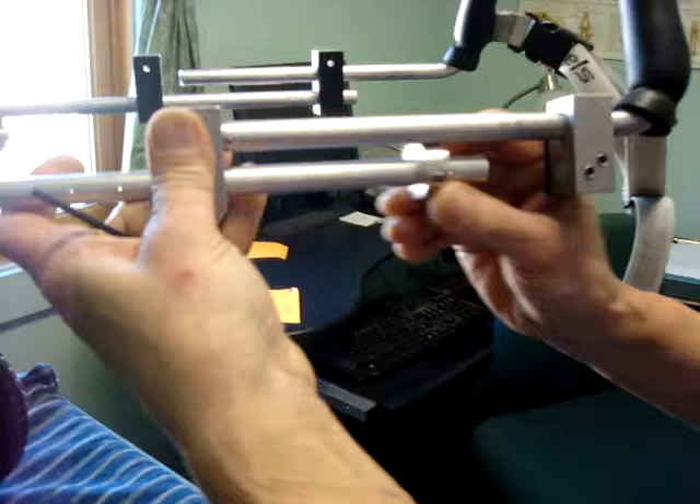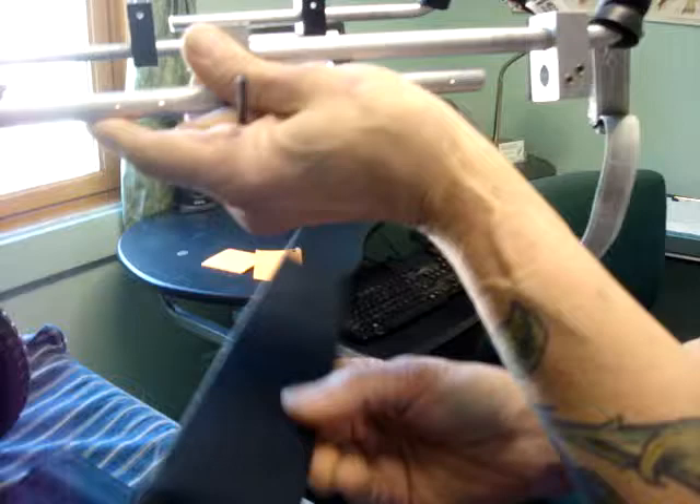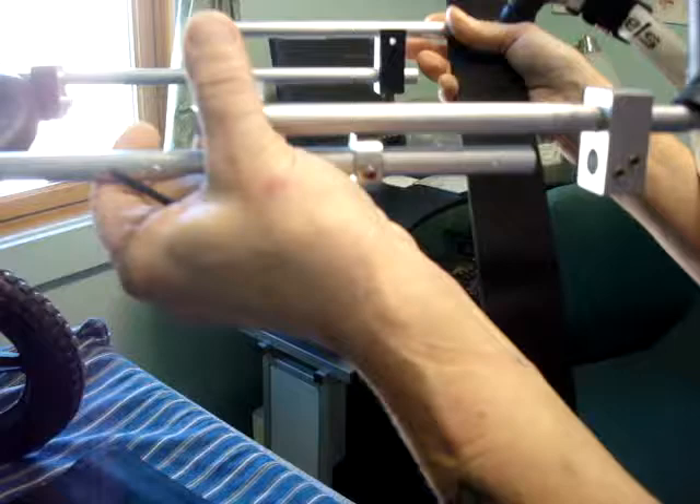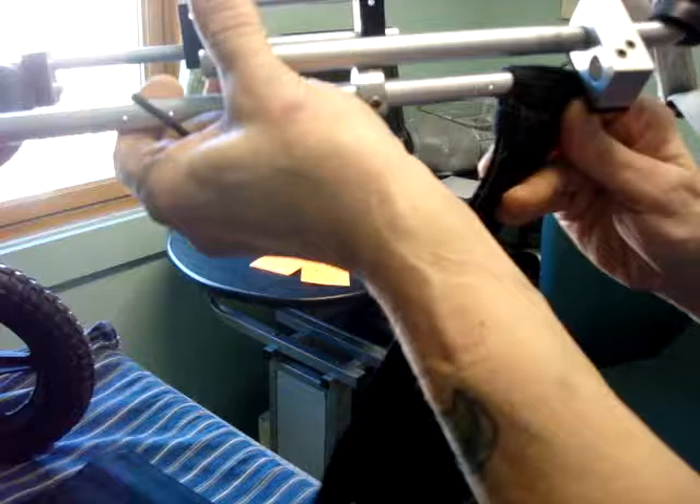On this side, I'm slipping the collet on. Now the side with the little piece of velcro is the side that you're going to put on where the pivoting yoke blocks are. And the side that opens — that's going to go on the side with the opening of the strap facing downwards.